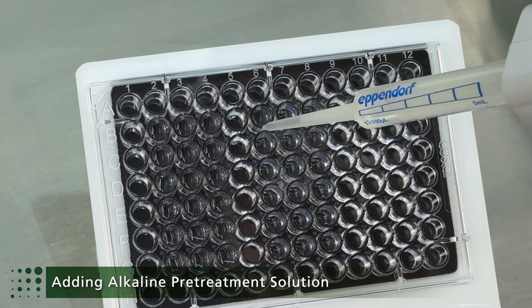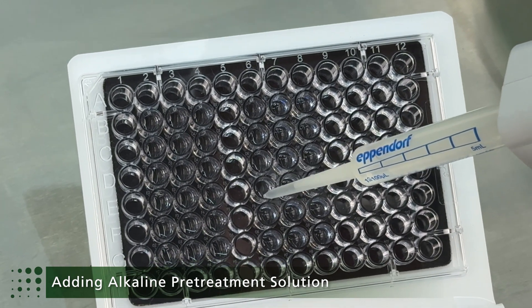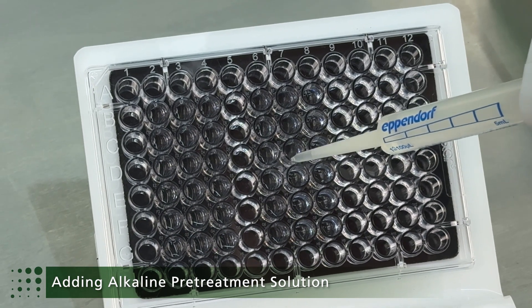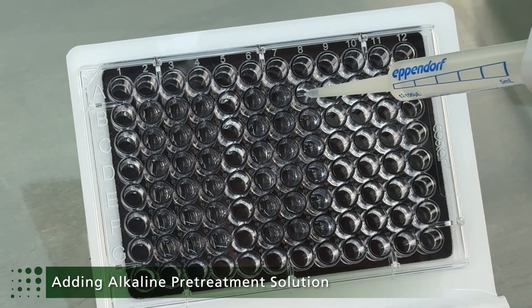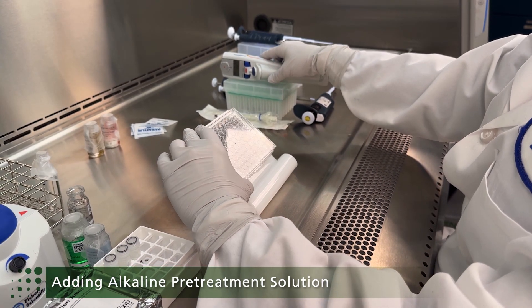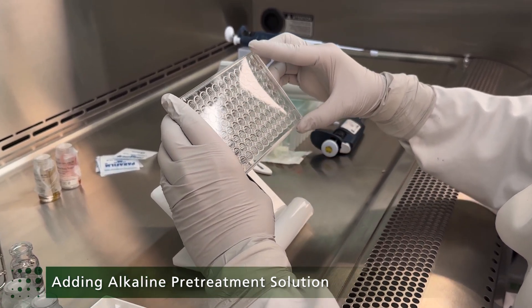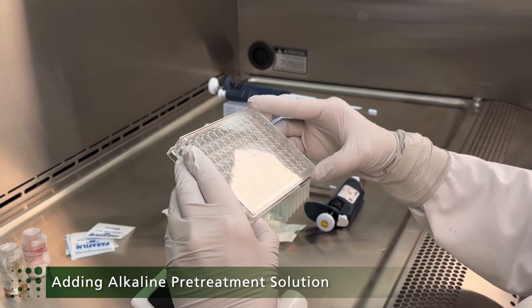Deliver APS directly over the top of the sample to allow proper mixing. When adding APS, the dispensing speed and movement between wells should be slow and smooth to avoid splashing into neighbouring wells. Confirm that sample mixtures are uniform, make sure the lid of the microplate is secure, and place the prepared microplate into the preheated reader for incubation.